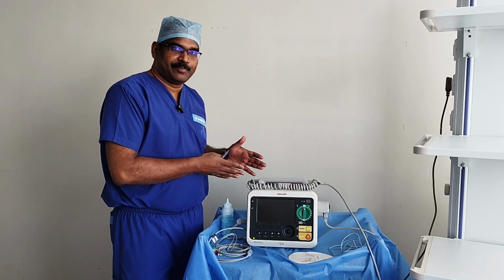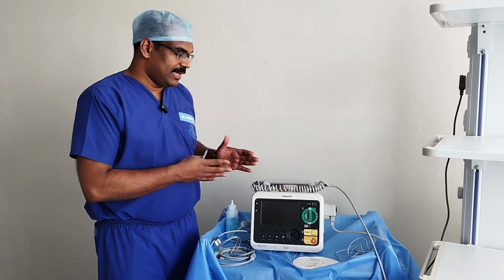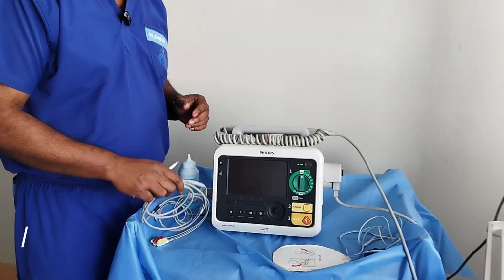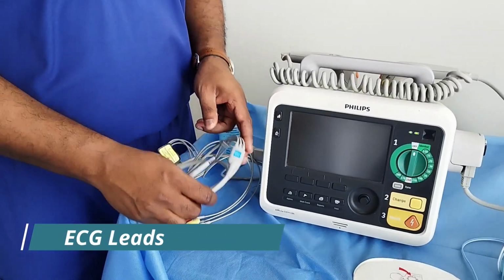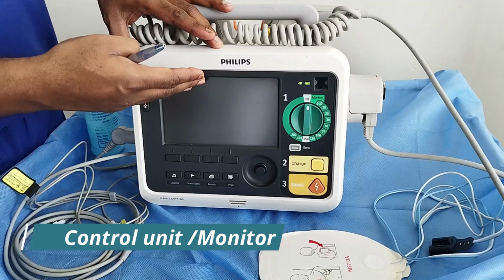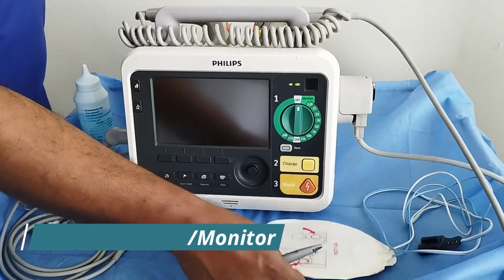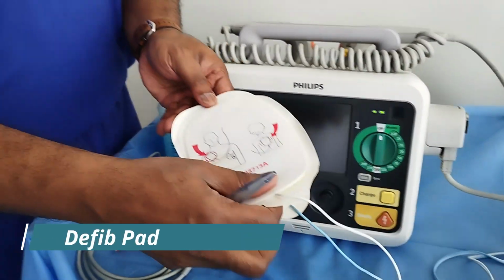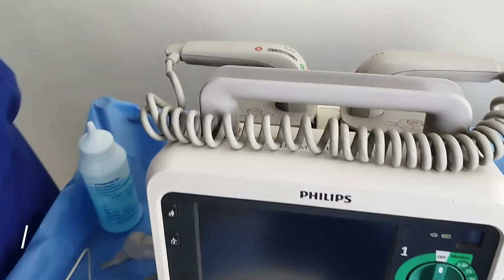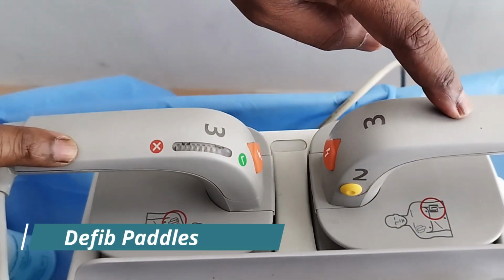Coming back to this equipment, it has three major parts. You can see ECG leads. This is the main unit with the control buttons and the monitor, and either defibrillator pads or paddles, as you can see, which is attached to the machine.